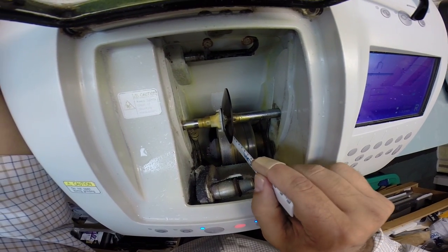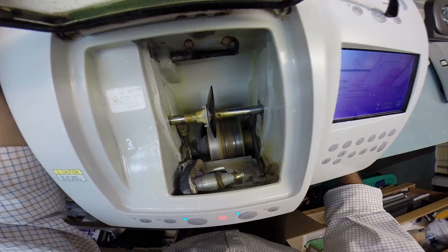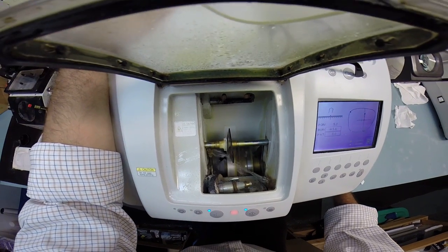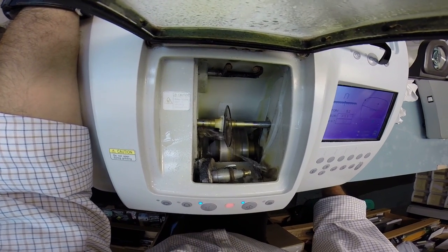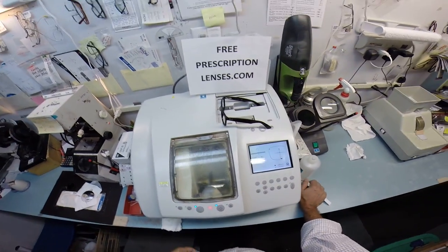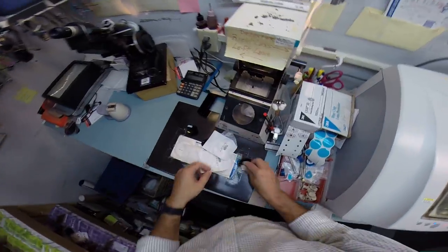The cutting wheel is down here on the bottom left. It's going to act like a heavy grit sandpaper that's going to grind away your lens material. And this wheel in the center with that little channel, that valley, that's what's going to cut the bevel onto the lens so it stays inside the bevel of the frame. I will have to close the door, but I just want you to see as your prescription lens touches down on the cutting wheel.